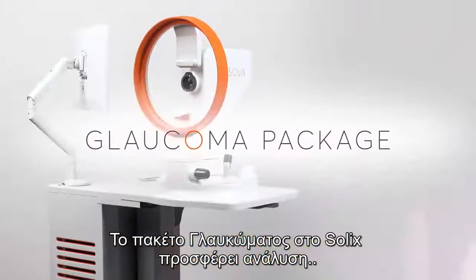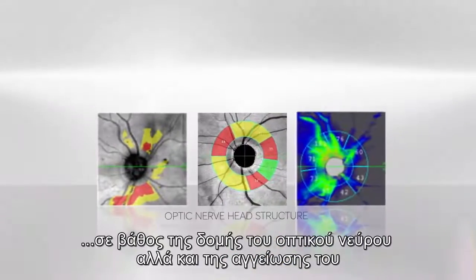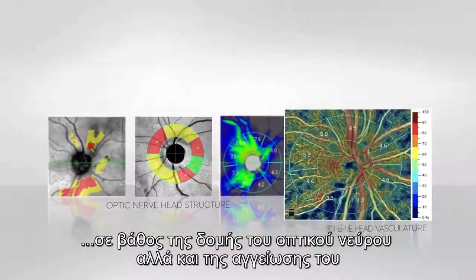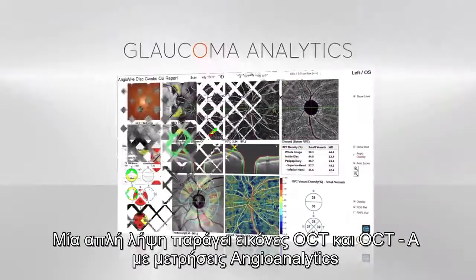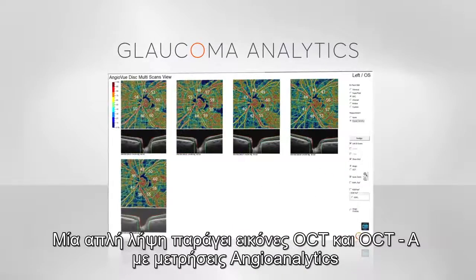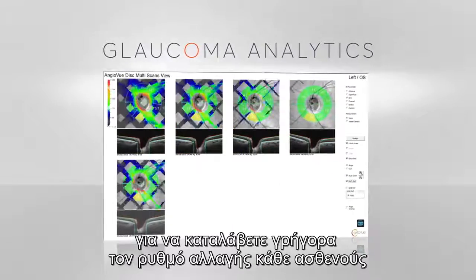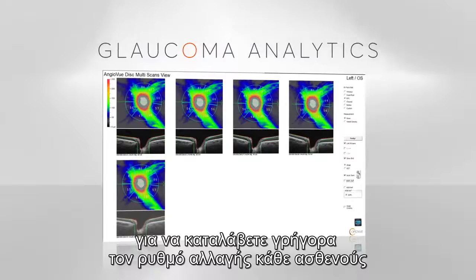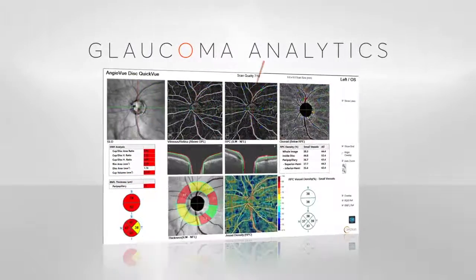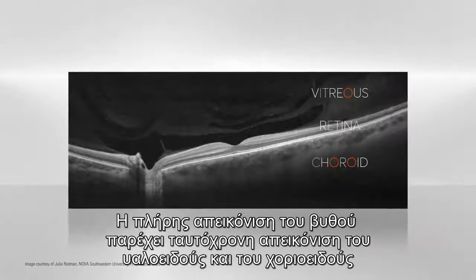The Solix glaucoma package powers in-depth analysis of the optic nerve head structure and vasculature. A single scan generates both OCT and OCTA images with angioanalytics metrics to help you quickly understand each patient's rate of change.